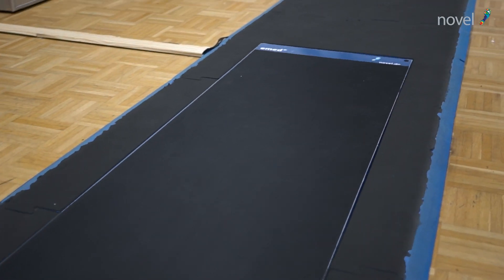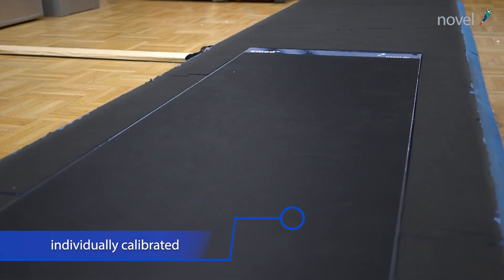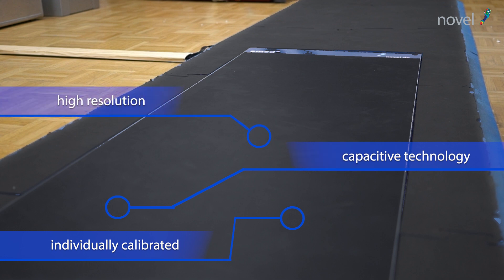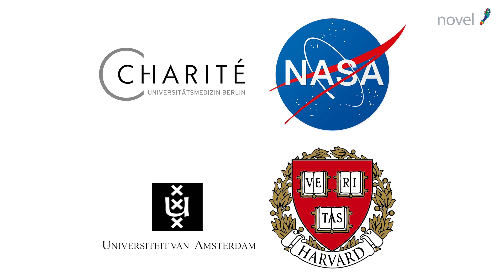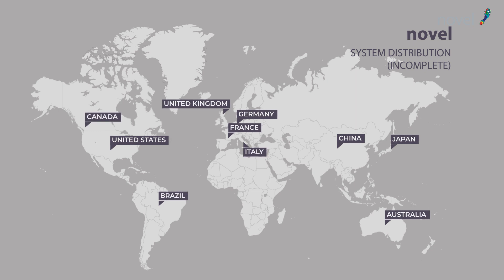Our platforms meet the highest quality standards. Each sensor is individually calibrated. Our capacitive technology and high resolution of the sensors guarantee precision and accuracy. Our system is established and successfully used by leading companies, universities, and hospitals in industry, research, and medicine all over the world.